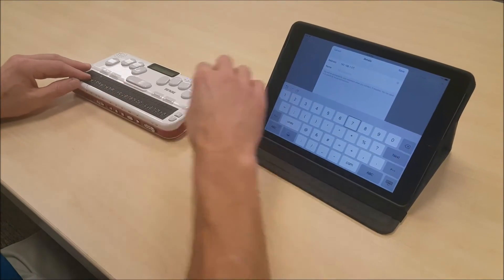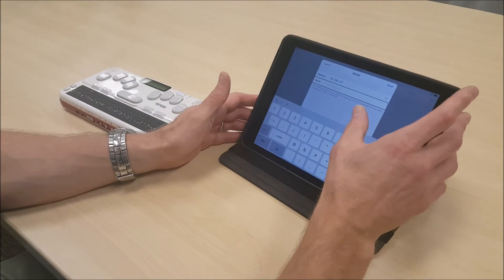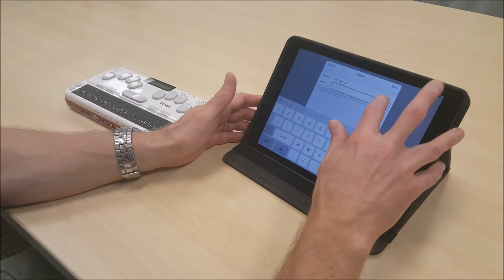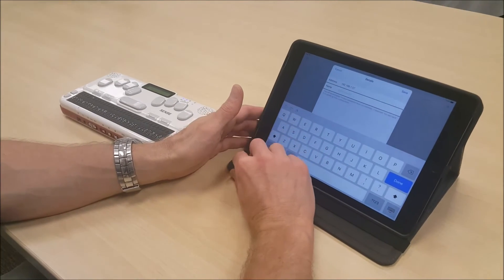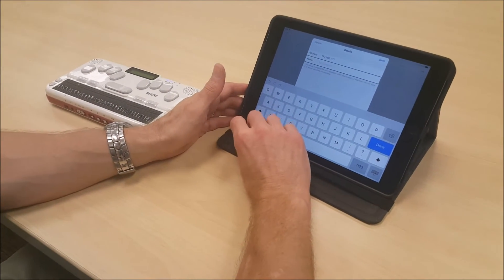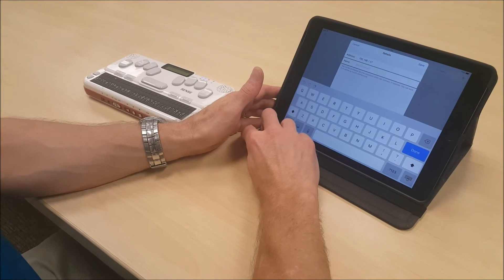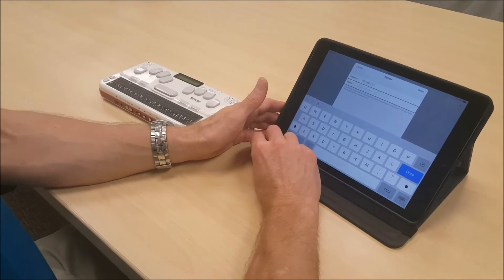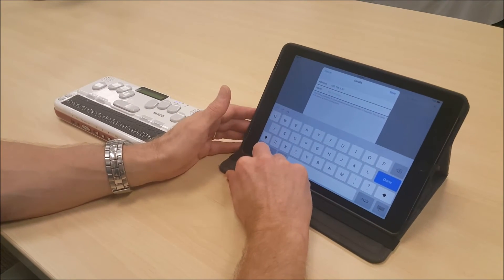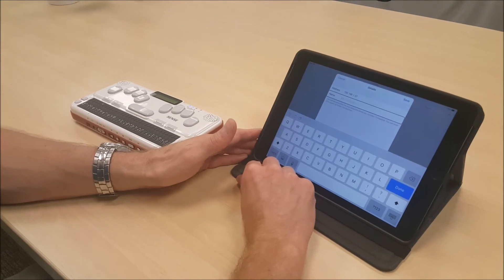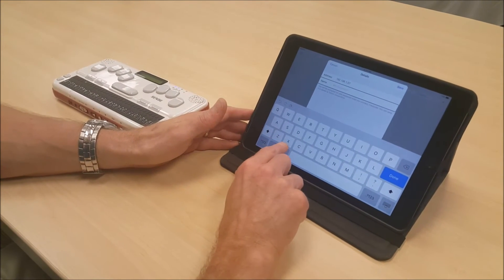After I have typed the IP address, I need to go to my next field, which is name. In the name, I can put whatever name I want to use for this connection. I recommend that you use a name that is going to remind you what wireless network you used to connect. This video is being recorded using the HIMSS Wi-Fi network, so we'll just call this connection HIMSS.